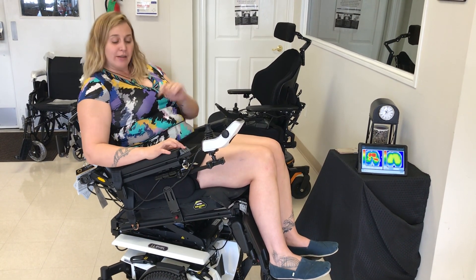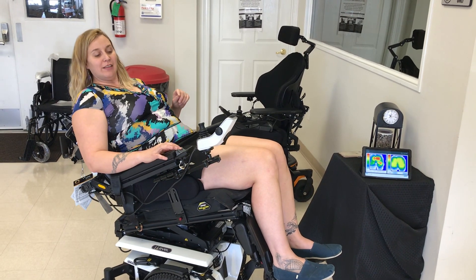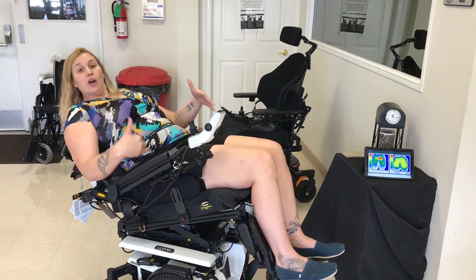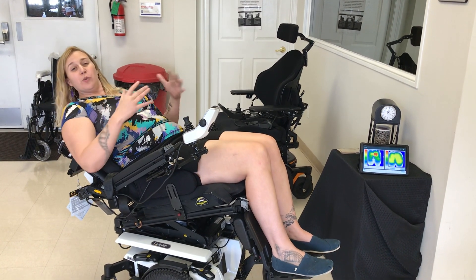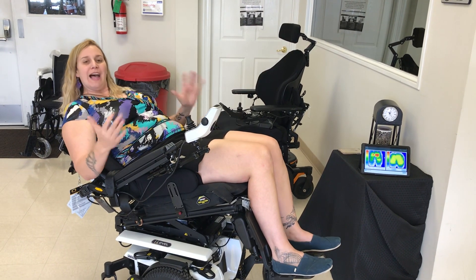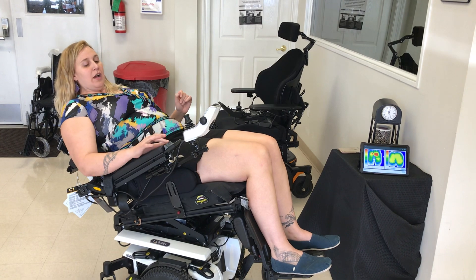Recline is where the hip angle of the back actually opens up — this is kind of like the lazy boy feature. When you do that, there are a couple other features that are happening. One is you are offloading more, which is great, especially for people who have had decubitus ulcers or are really at risk.